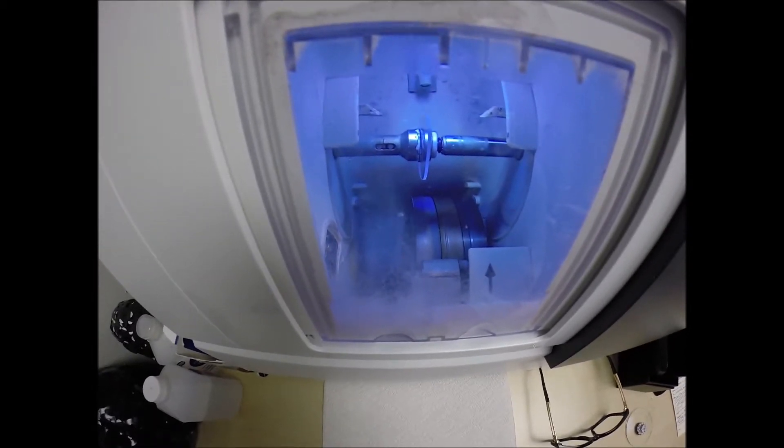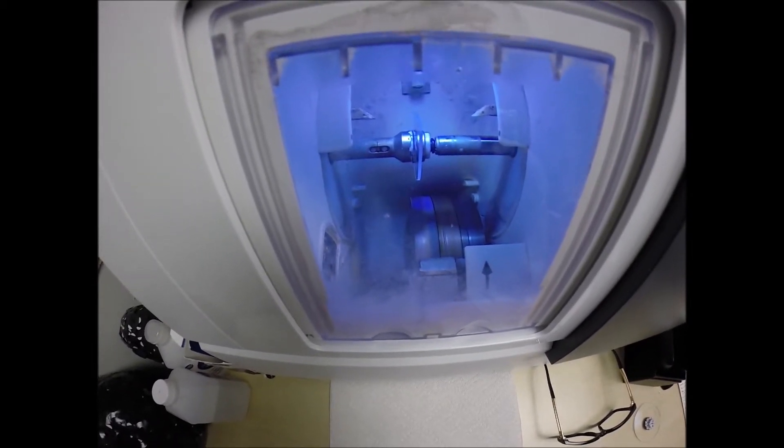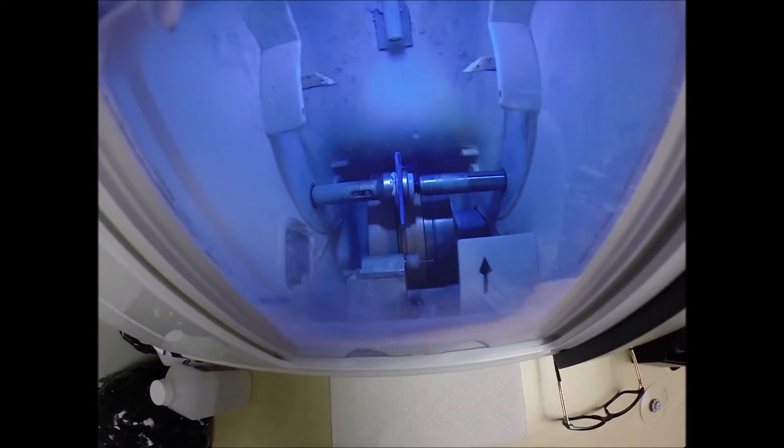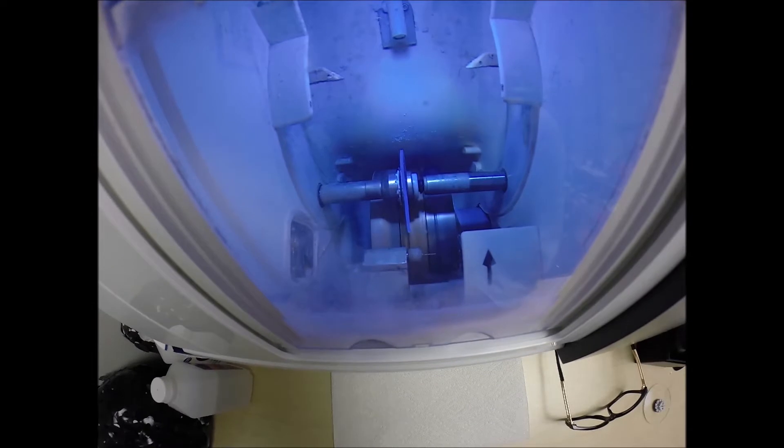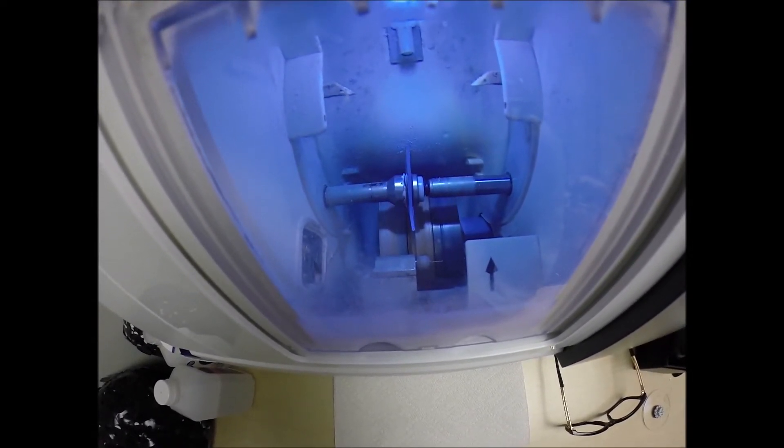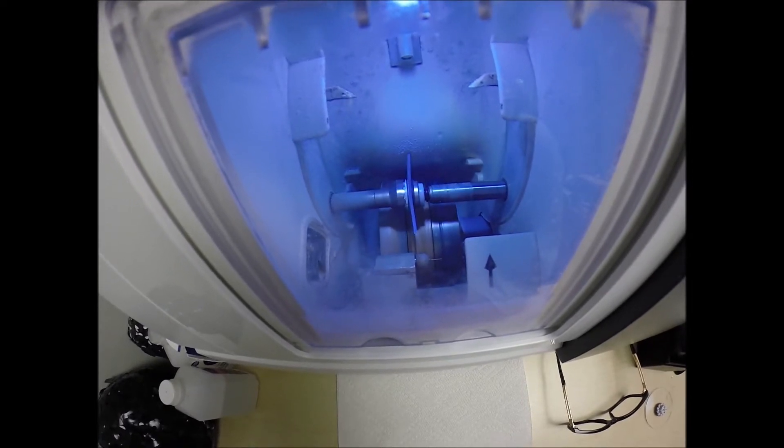Now, if you notice, your lens is completely flat all around the edges, just like a nickel. So, if I were to take it out now, it would stand up on the counter on its own. Now, it's getting the V-shape, the knife-like edge, knife-like bevel. A very dull knife, much like myself, but a very knife-like edge nonetheless.